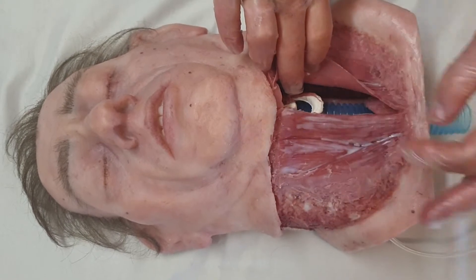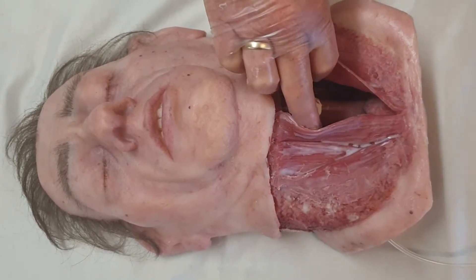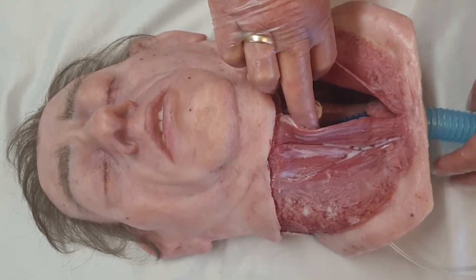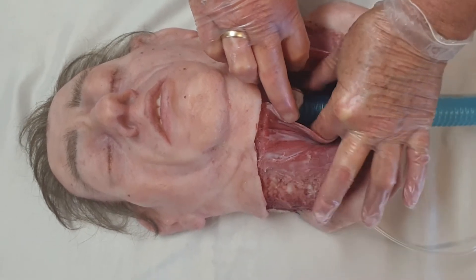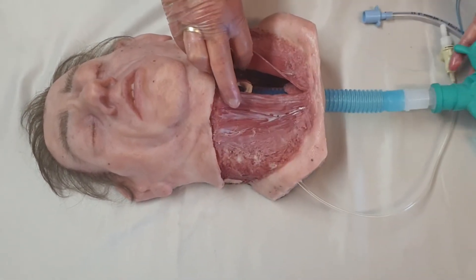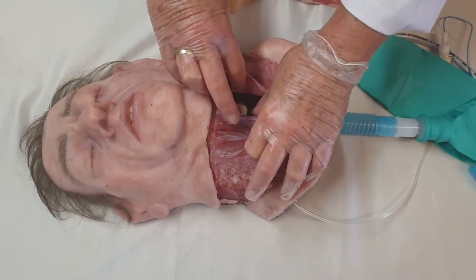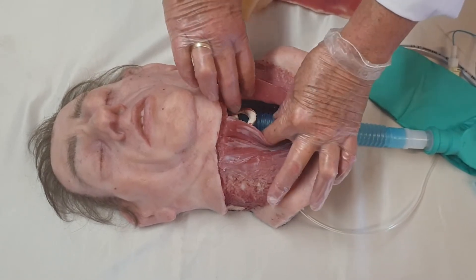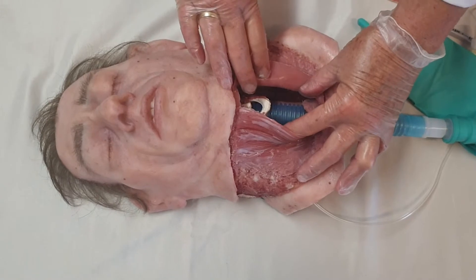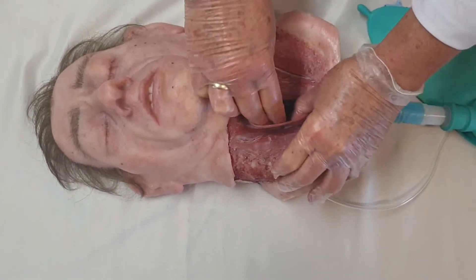This is the blue pipe that sits in here — it's easy to remove and can be swapped with any other blue pipe that is connected to a balloon, which is available in most hospitals. Just attach that, put the fatty tissue back in, and then you can go for another round of training.